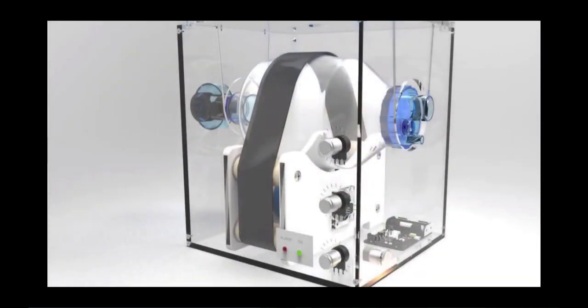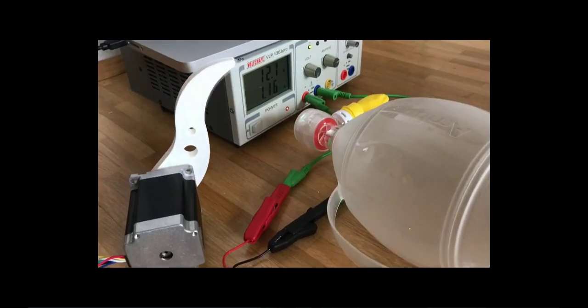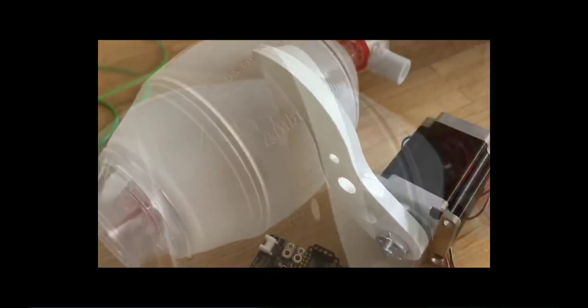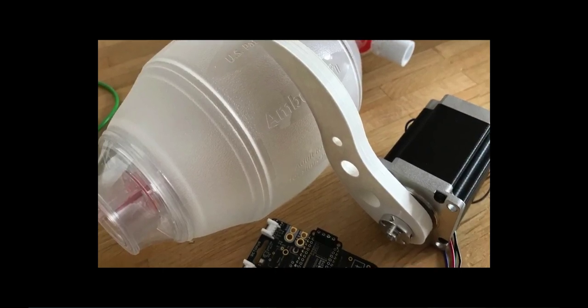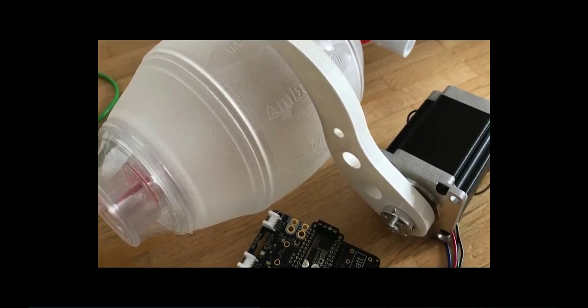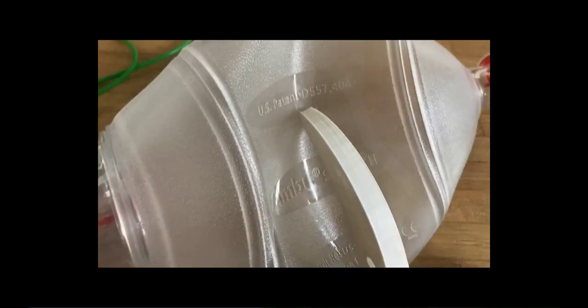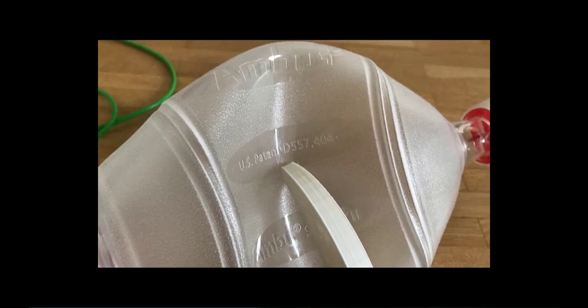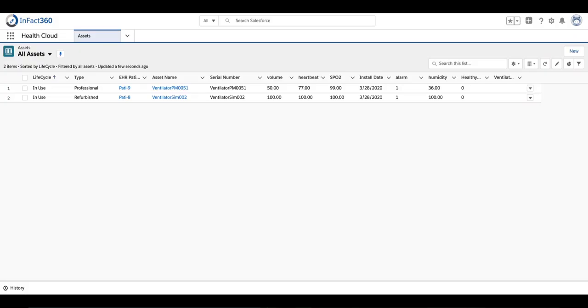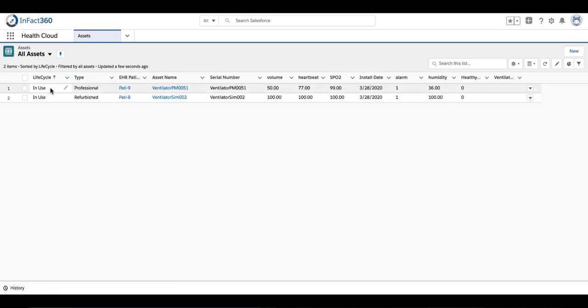These do-it-yourself ventilators must fit into the daily processes and meet the compliance requirements in real hospitals. Using an Arduino with multiple attached sensors and a simple stepper motor, you can monitor and drive a do-it-yourself ventilator. Let me show you how it works.